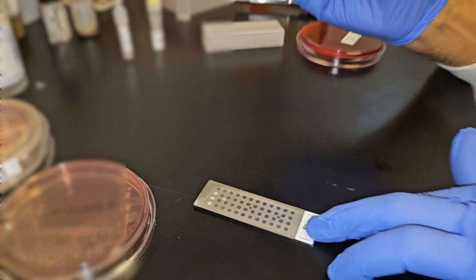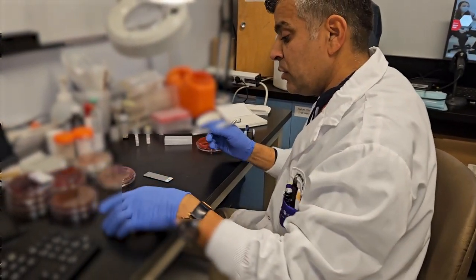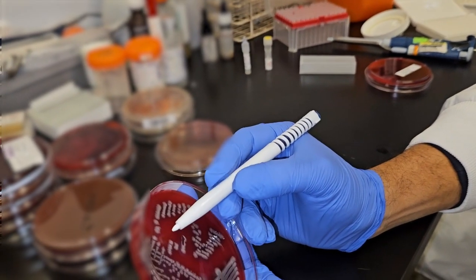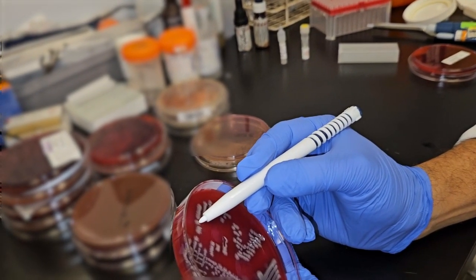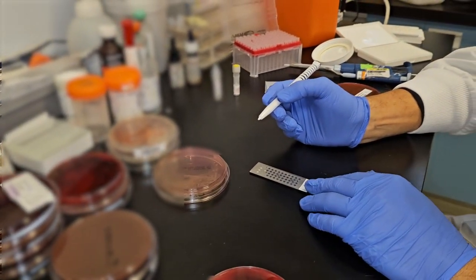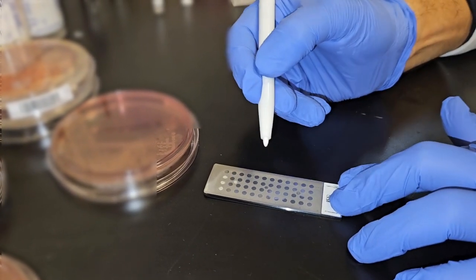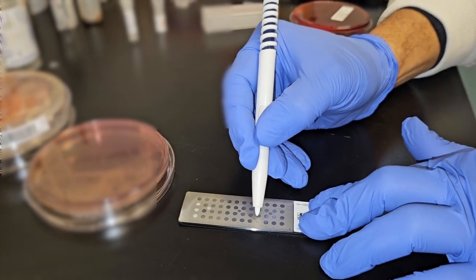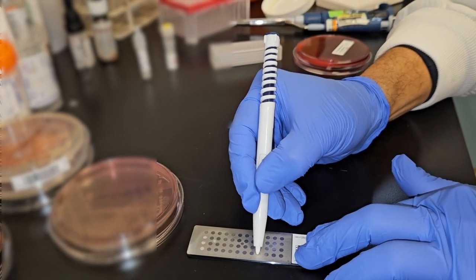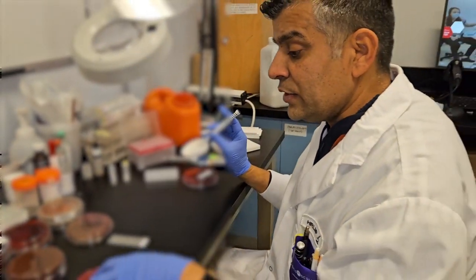This is the control. After the control, I have to do my patients. I'm doing my first patient now, just touching the side of the colony. Usually in microbiology, you have to touch 3 to 5 colonies. I'm just touching the side of 3 to 5 colonies and then smearing on the target slide. This is row I, the first spot. This is the one bacteria I'd like to identify during MALDI-TOF.